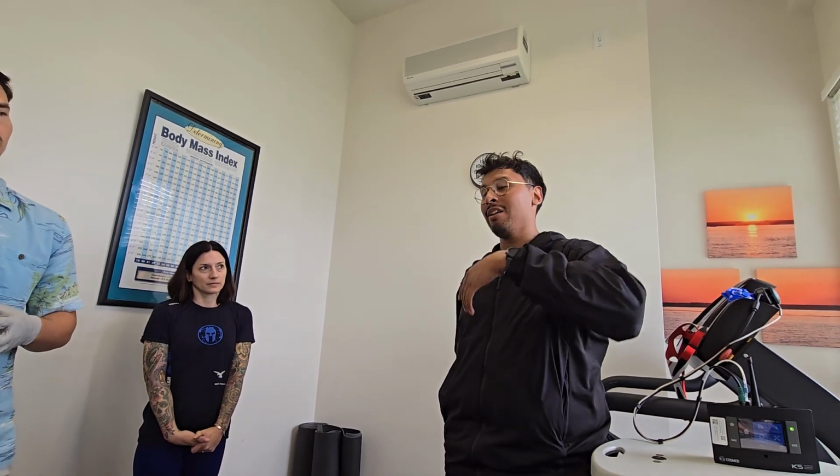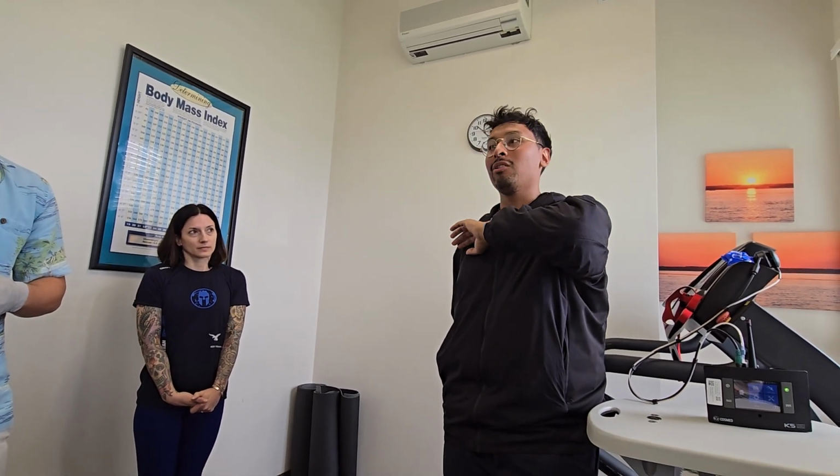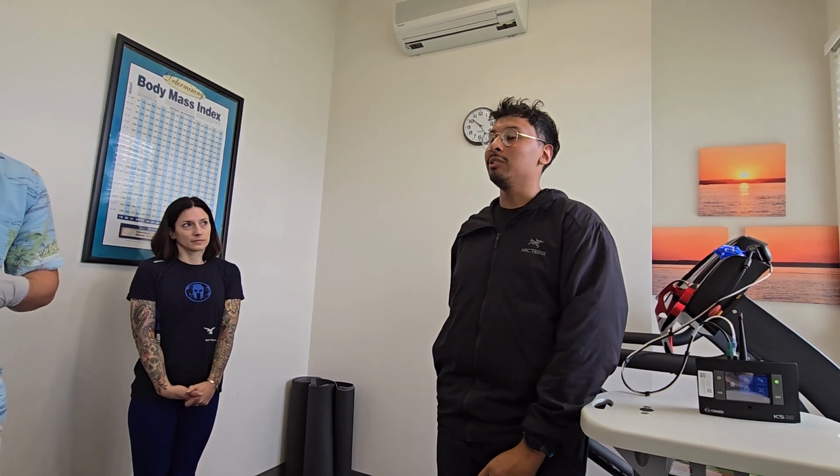Sorry, if you run it on the lower one for an elite athlete, will it be wrong? It won't be wrong, but you do have to choose. I would say if you do end up running a test and that runner ran 3, 4, 5 minutes plus with a respiratory frequency constantly over 60, from then on you would probably only want to use a mixing chamber on that subject.